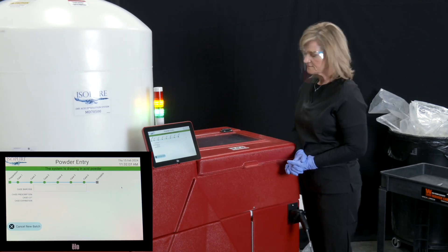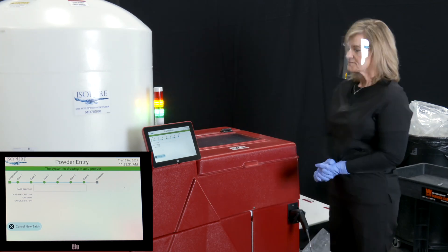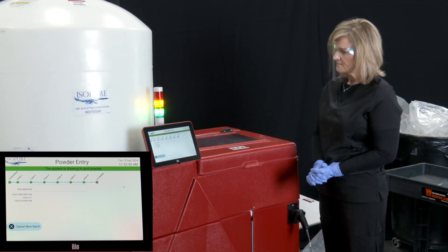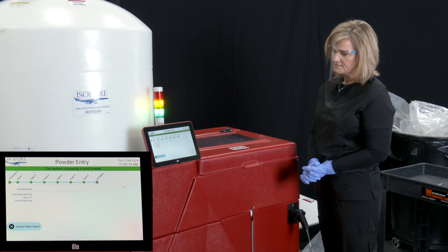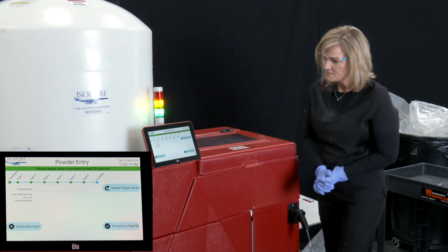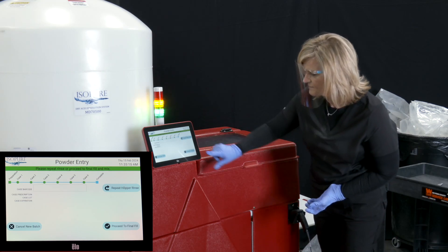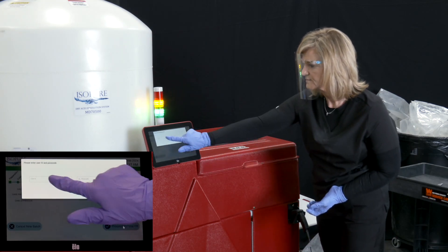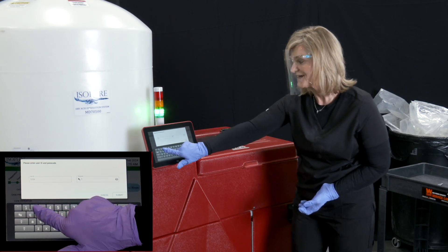Again, be sure to close the lid between each bag added to the hopper to ensure accurate counting of bags by the Acumix. After all cases have been added and the operator confirms the hopper is empty, press the Proceed to Final Fill button.